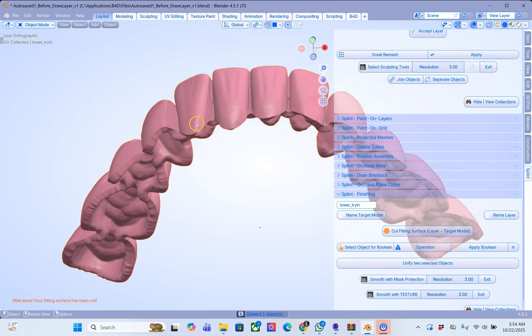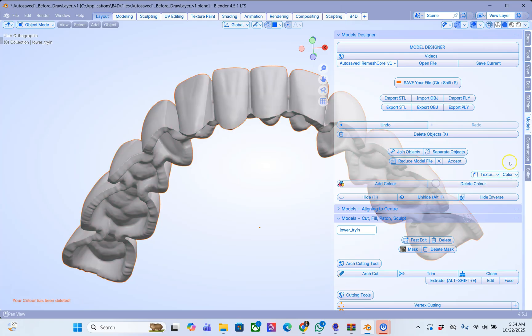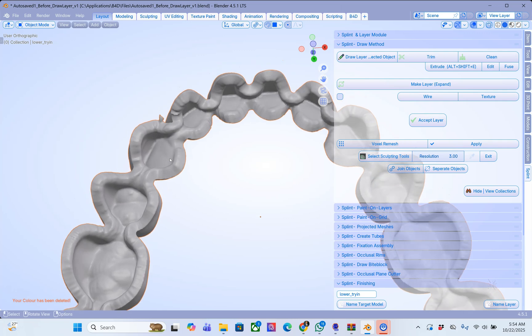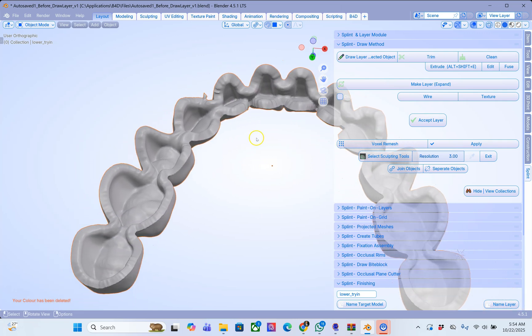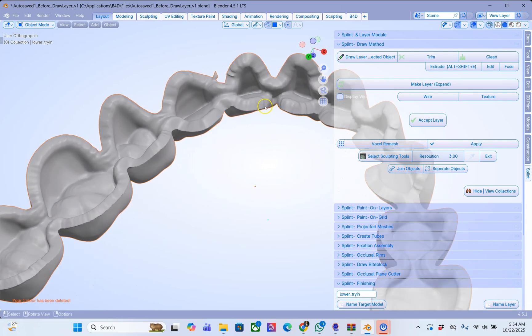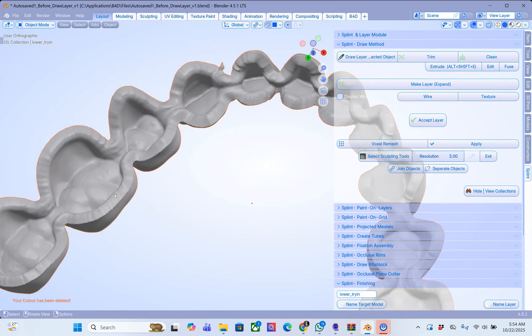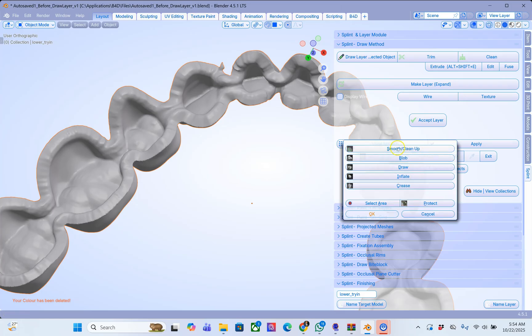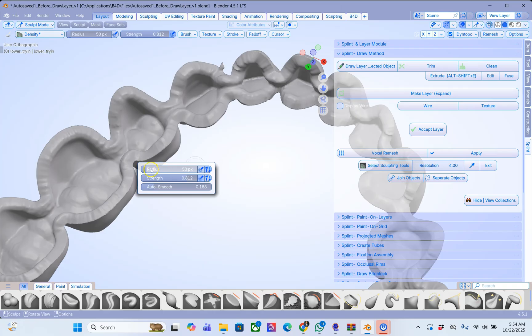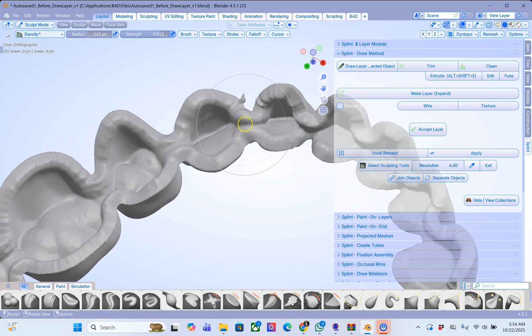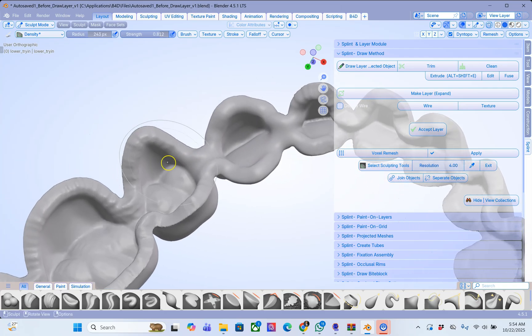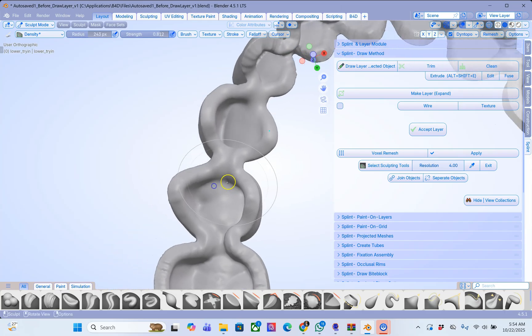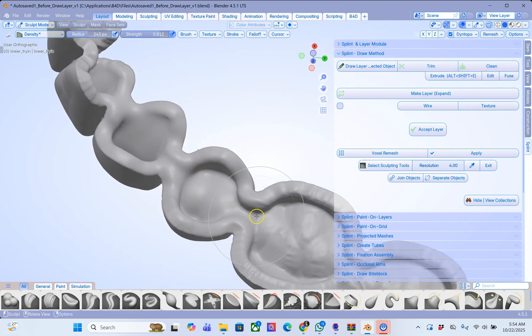So these are your teeth. I'm just going to delete the color. Now we see that we've got a few undercuts and I'm not 100% happy with this because this becomes our cutting tool. So now what we are going to do is we are going to select our smoothing tool. Right click to set the radius. Auto smoothing. And we are just going to smooth this a little bit and try and eliminate some of these undercuts by smoothing.